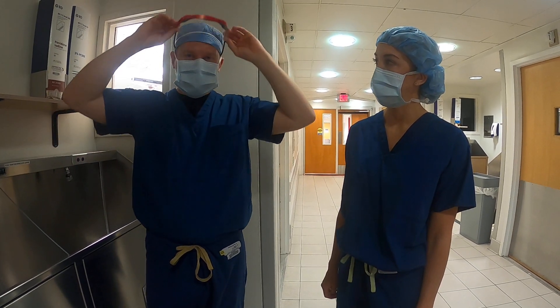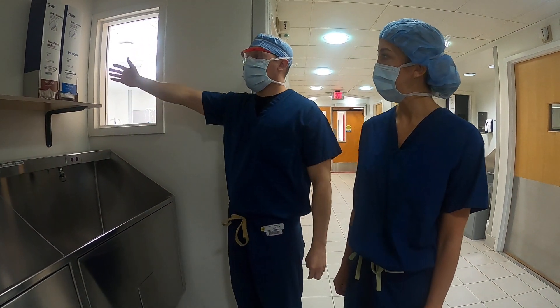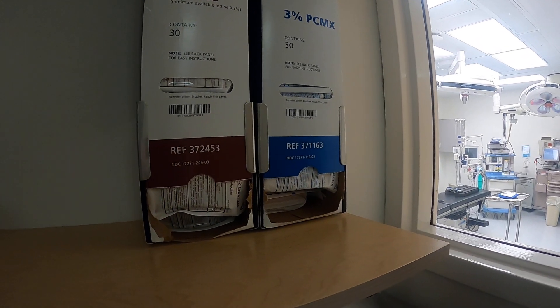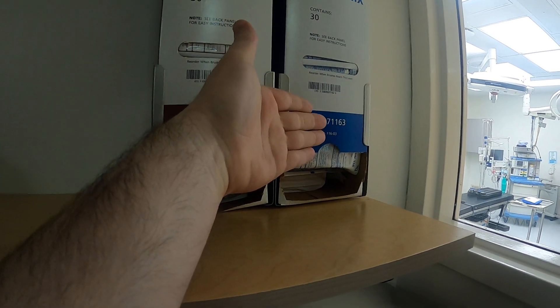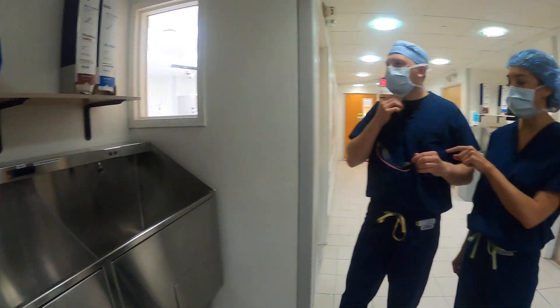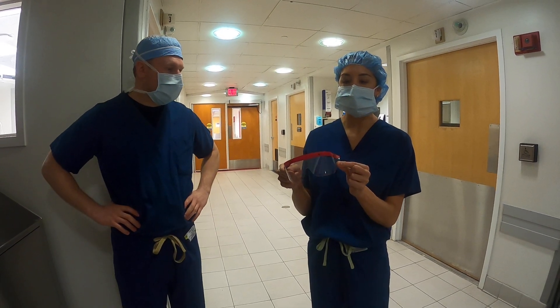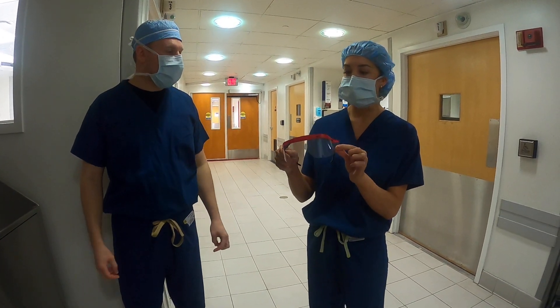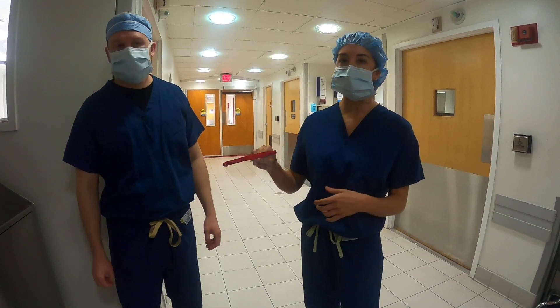For scrubbing solutions, we have povidone-iodine (betadine) and PCMX here for comparison — you may also have chlorhexidine. Going back to eye protection: if your shield gets dirty between cases, make sure you switch it out. You can hang on to the frames but switch out the shield for every case if it gets blood, gunk, or sweat on it. Make sure that eye shield is always clean and clear, especially going into a new case.